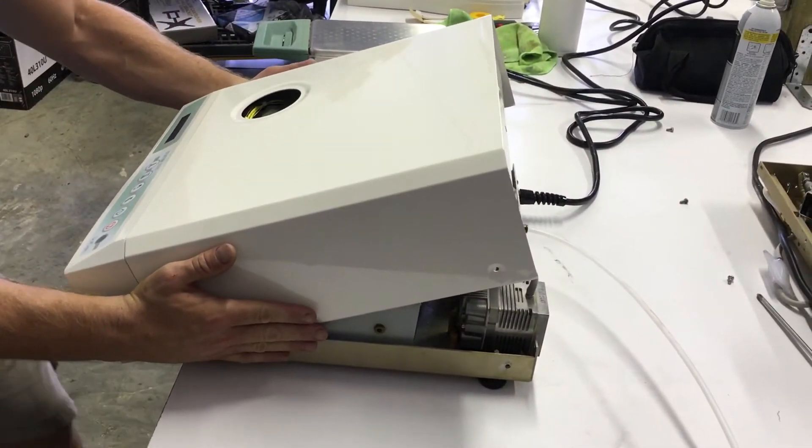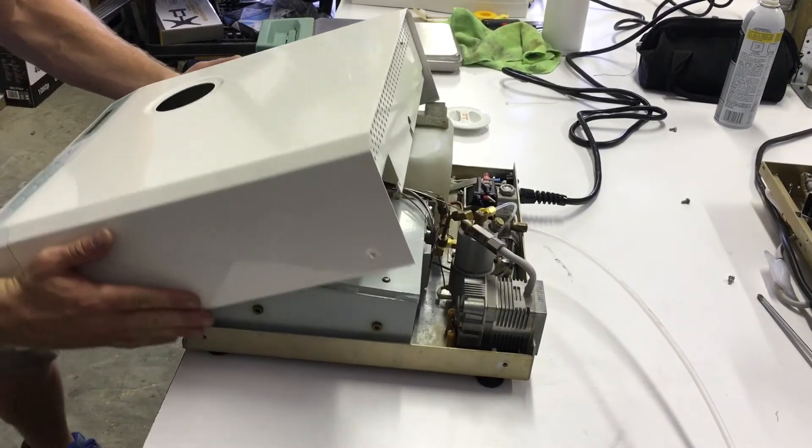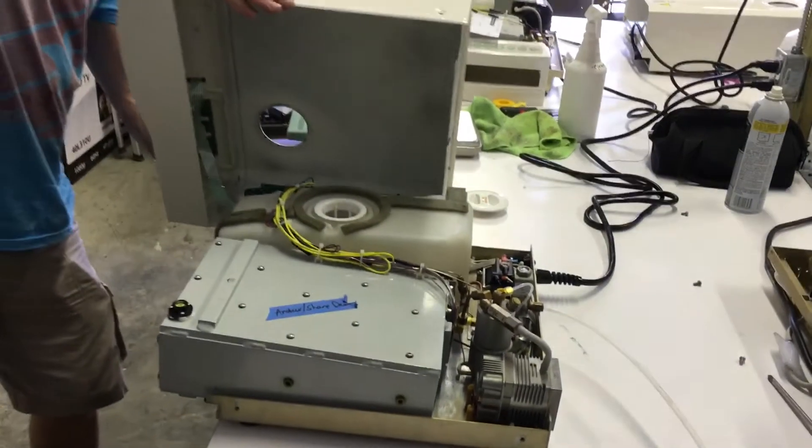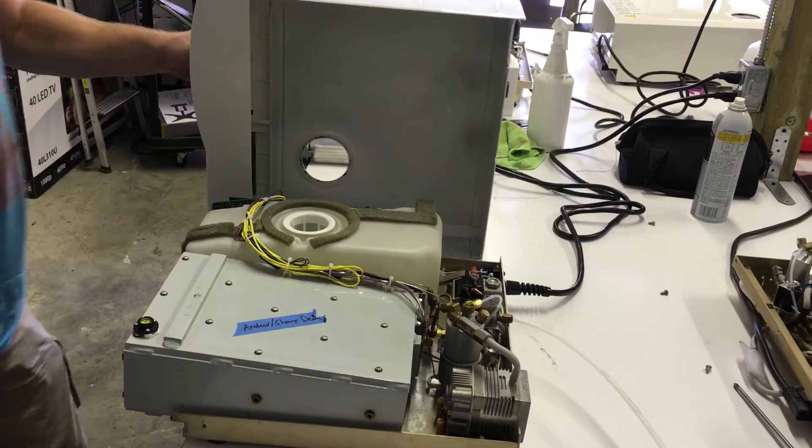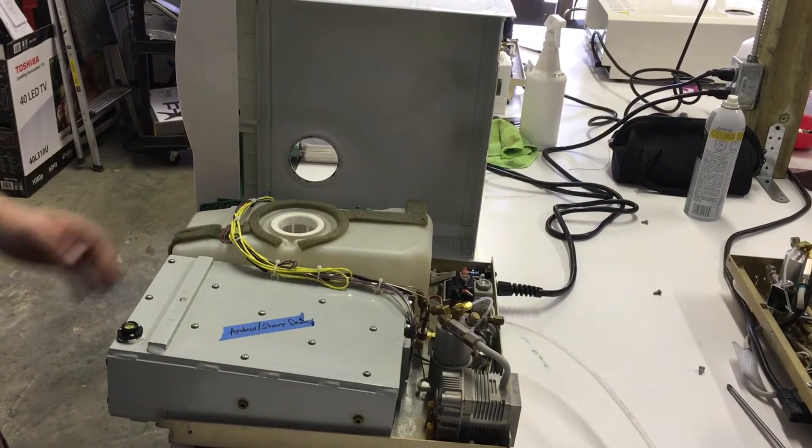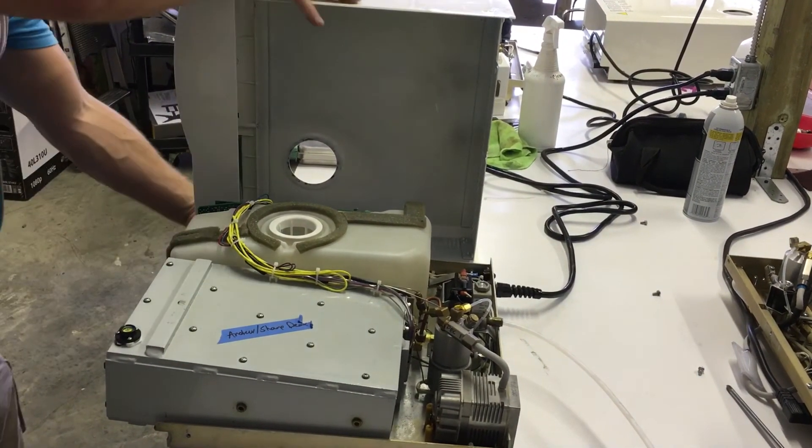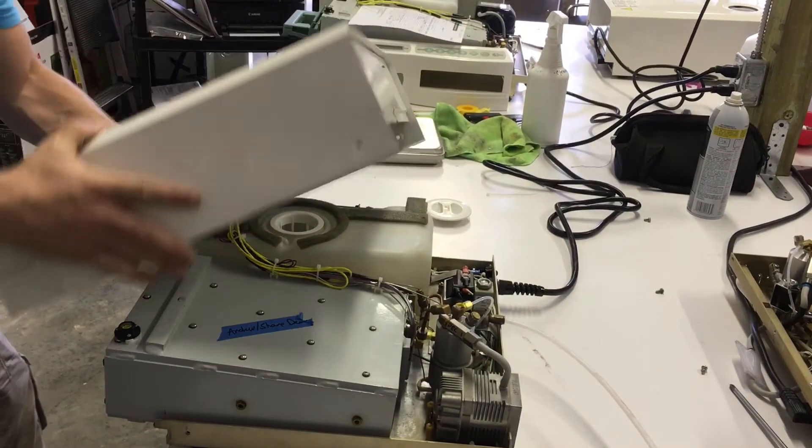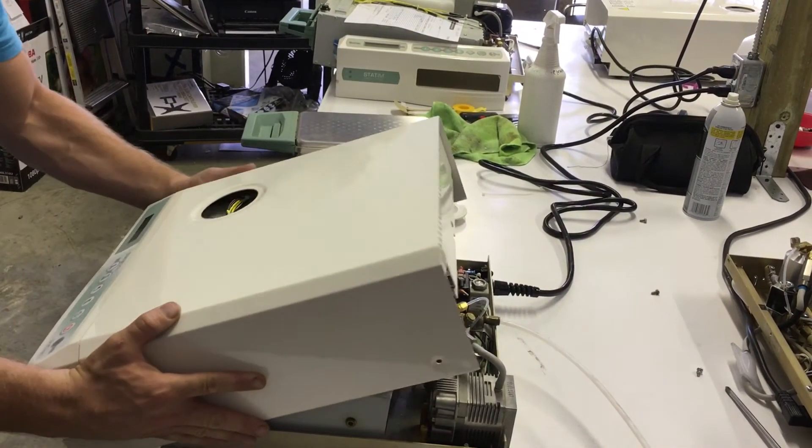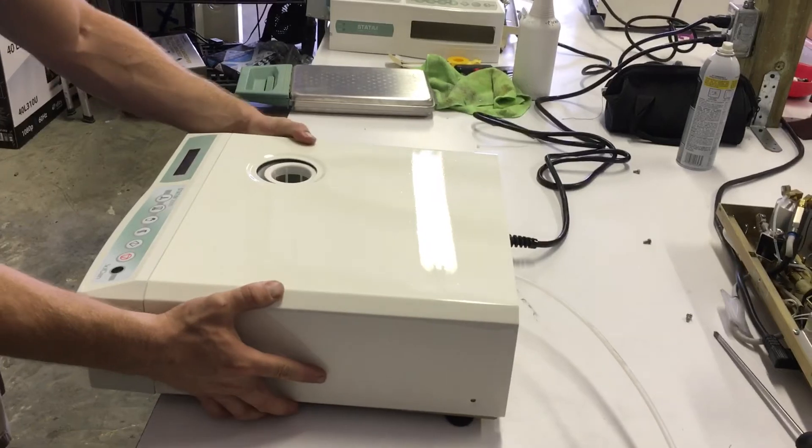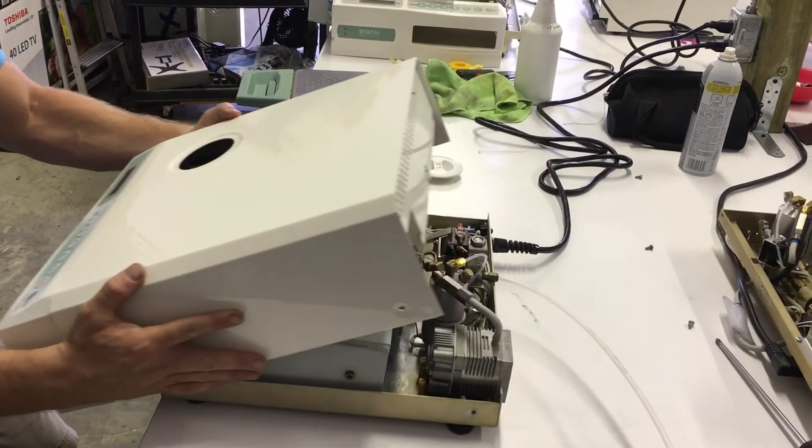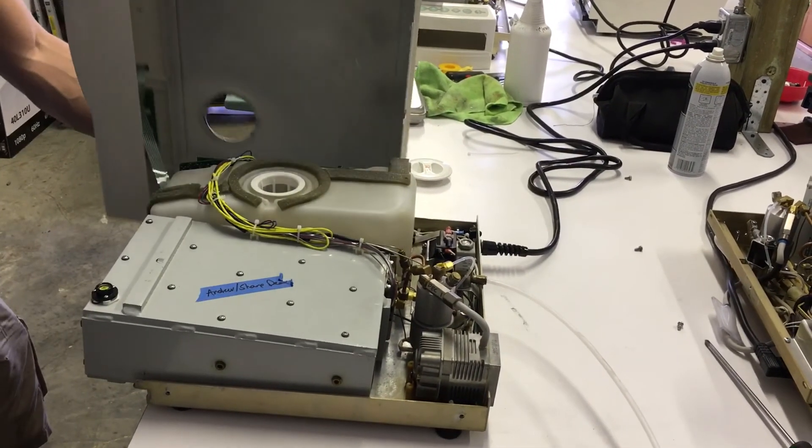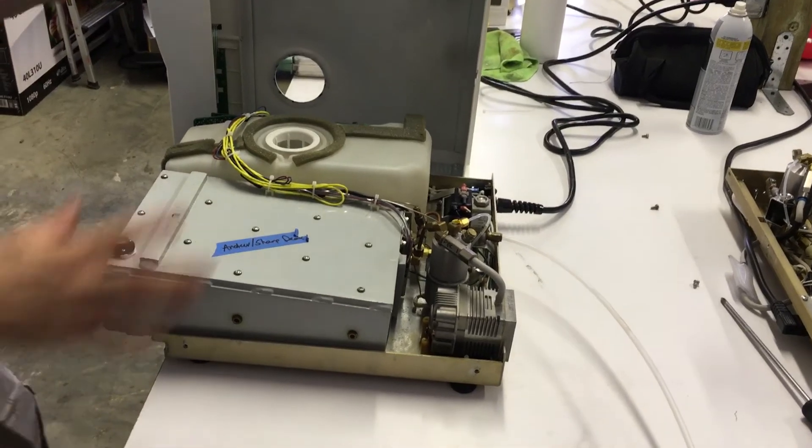You're going to slide the machine to you, and then rotate over the top, laying it on its side. Keep in mind there are ribbon cables on there. You don't want to pull too far. Again, start from the back, pull the back up, slide to you, rotate over the top. Now it's leaning on its side.